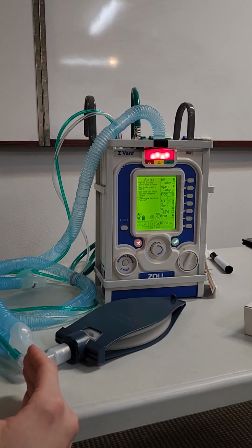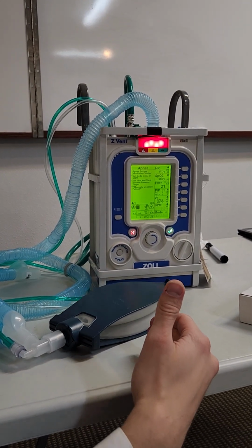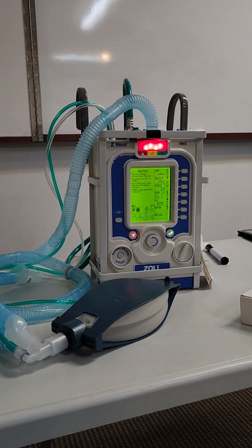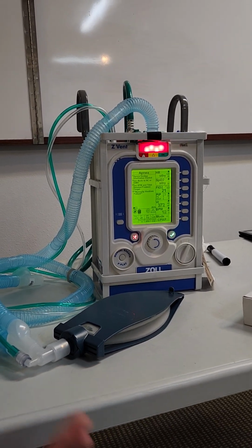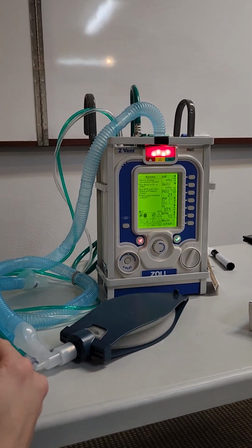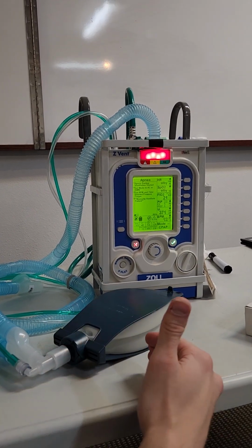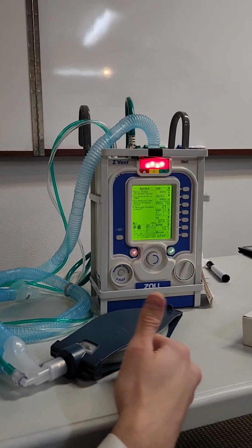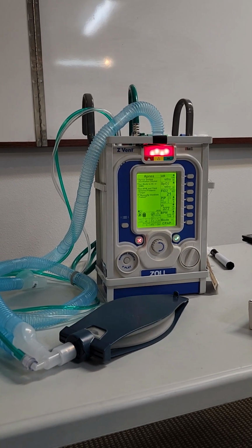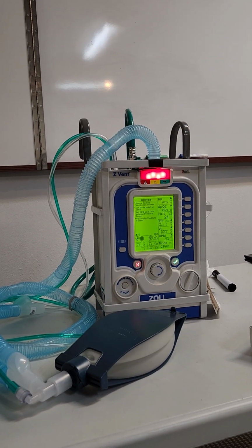You don't really take that many breaths, and then the next 30 seconds, you take a bunch more. Some people might just have a strange breathing pattern like that. And if you're already on CPAP, BiPAP, you're probably doing some strange breathing at the time as well. So if you have it set for 10, you might get yourself through that first 10 seconds or the first 30 seconds, and the second bit, they will catch up themselves. But if you're looking at strange breathing patterns like that, you're probably already working through a bunch of other things on top of it.